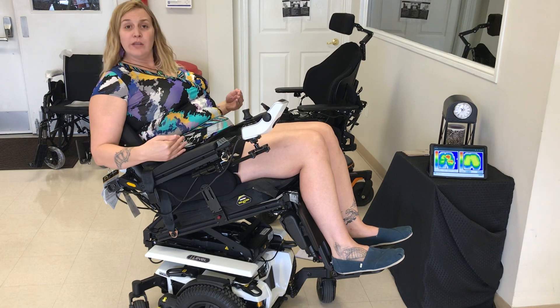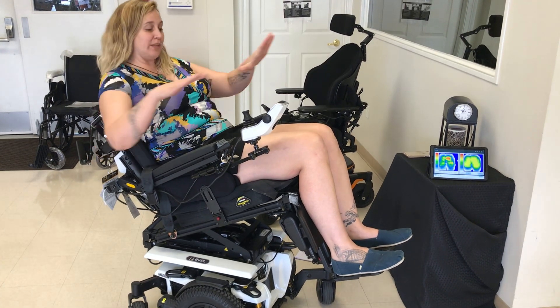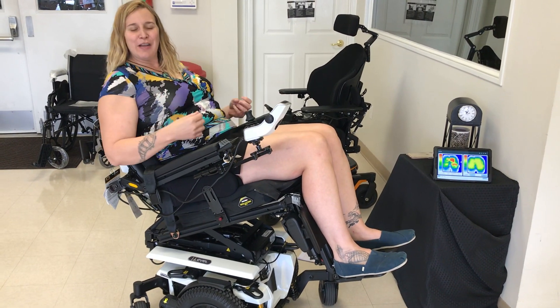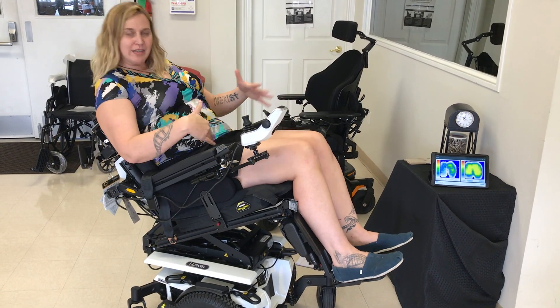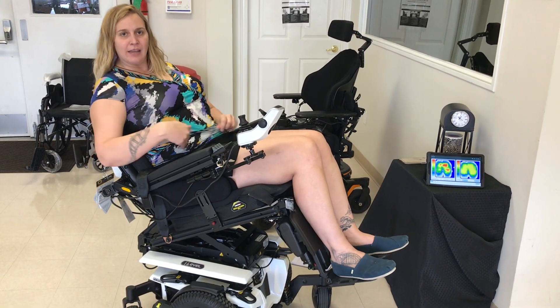It's also really helpful for transfers, because when someone transfers in, instead of having to go behind them and kind of hoist them back, you can use gravity to kind of let the hips sink back.